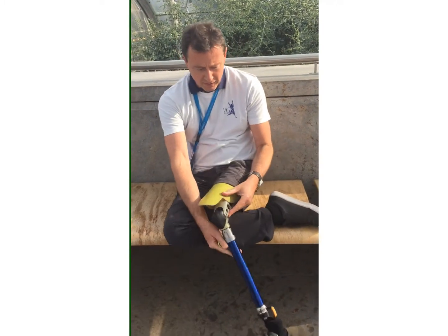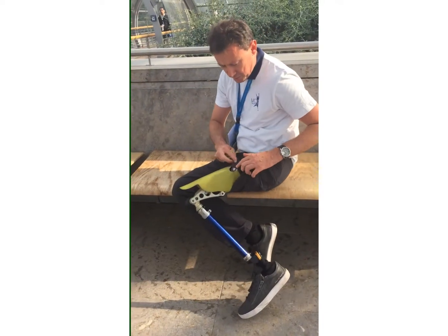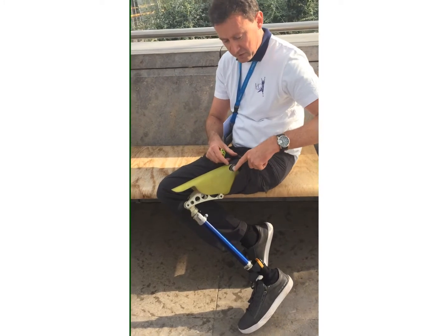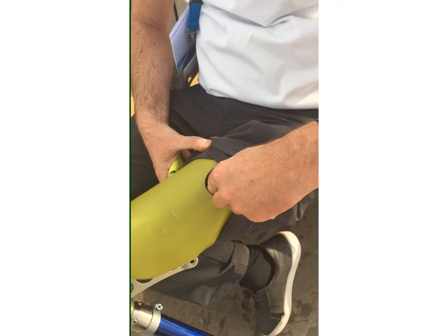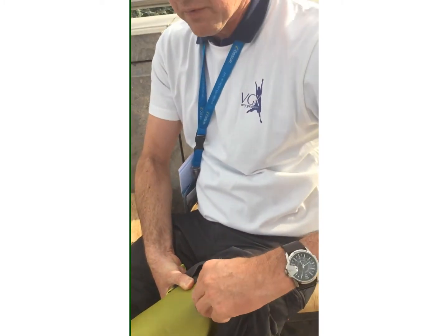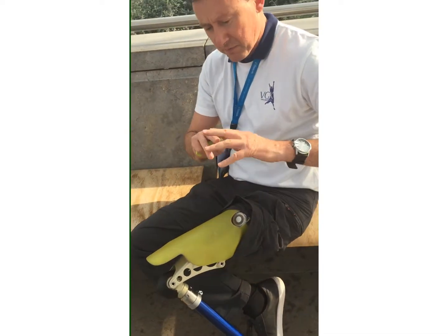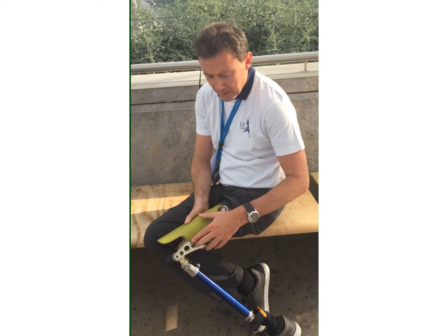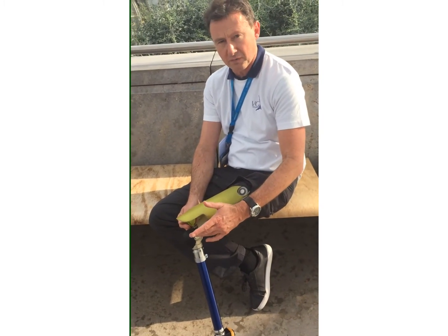Now that it's bent, you can see my tube starts here, so you can imagine it's 11 centimeters femur. Then it's a traditional vacuum — that means it's attached with a valve. In this case it's a silicone valve, silicone socket. There's a frame with carbon fiber and the mechanism is on top of the axis, which is one of the crucial facts.